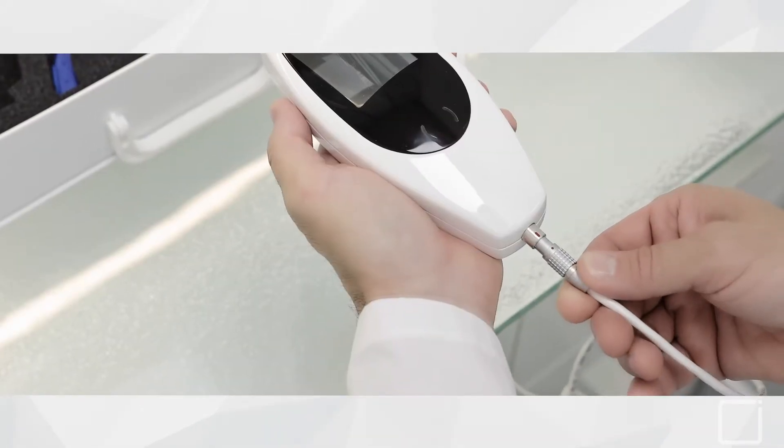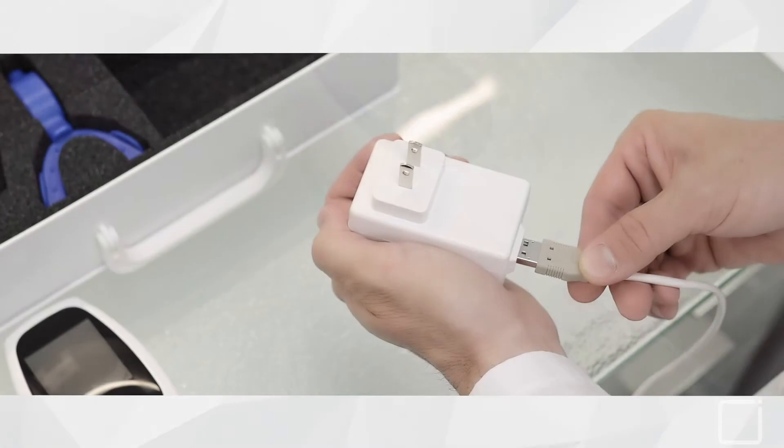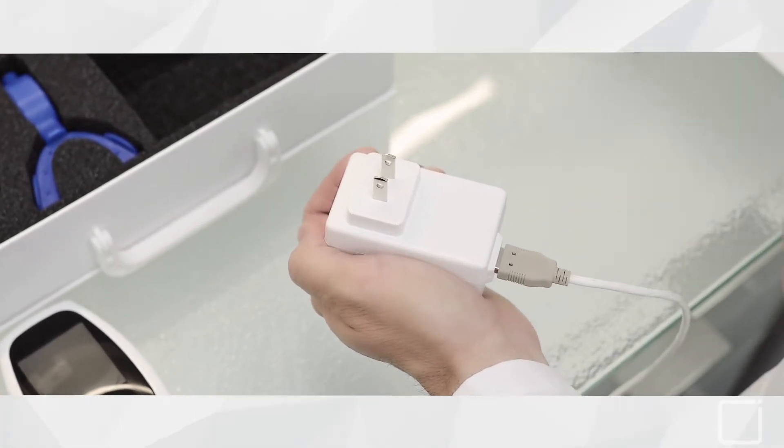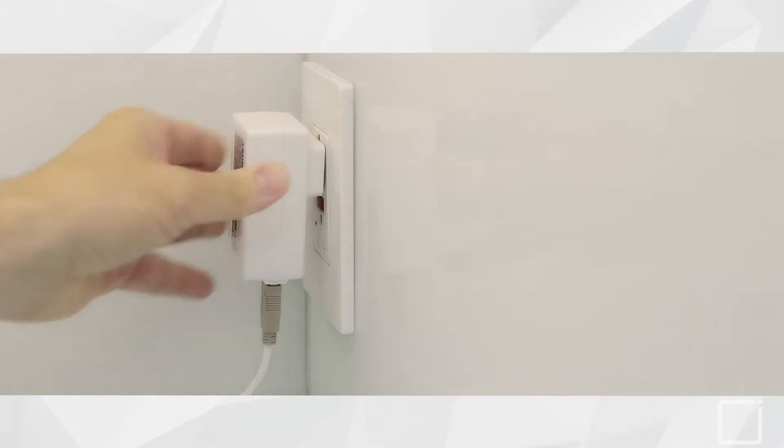The charging cable connects identically to the connection cable. The opposite end of this cable will then be introduced into the USB wall adapter to charge your InnoByte.